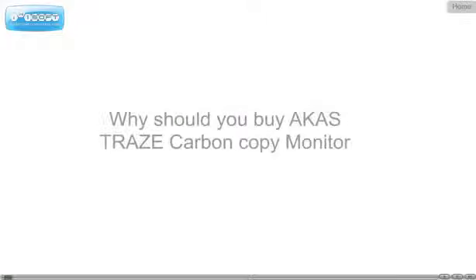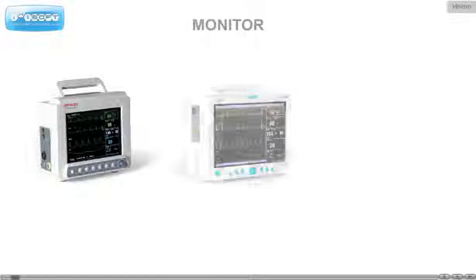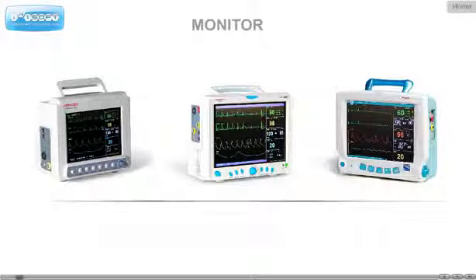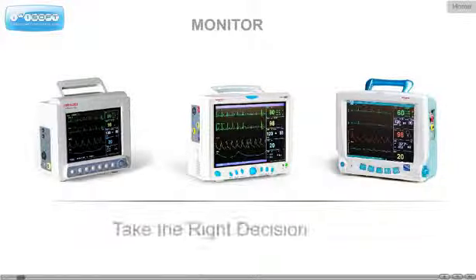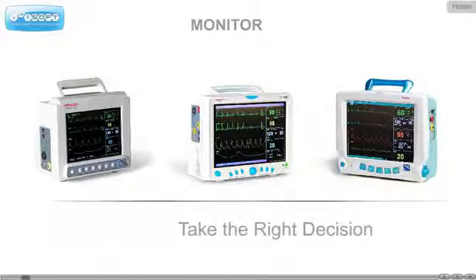Patient monitors. If you're going to invest in patient monitors, then the next three minutes of video presentation will help you take the right decision.